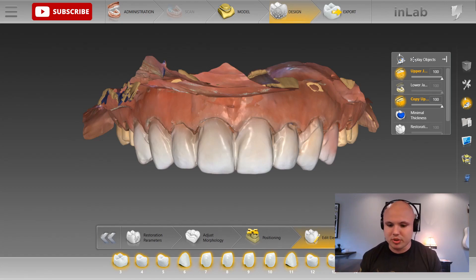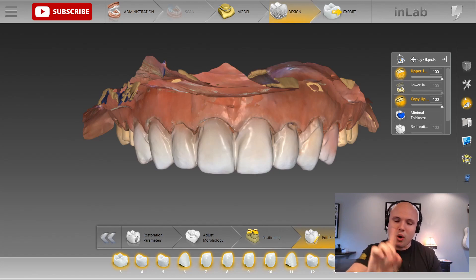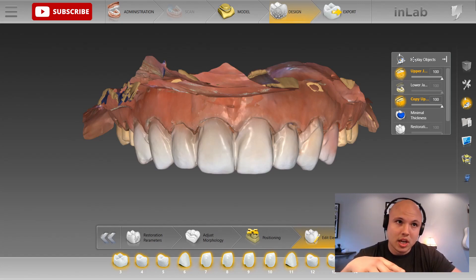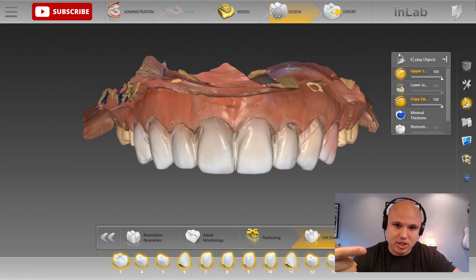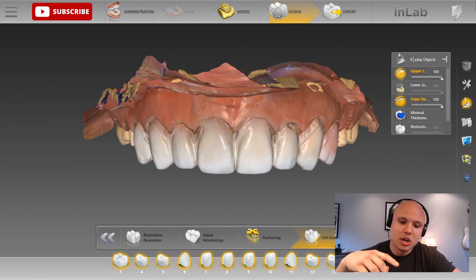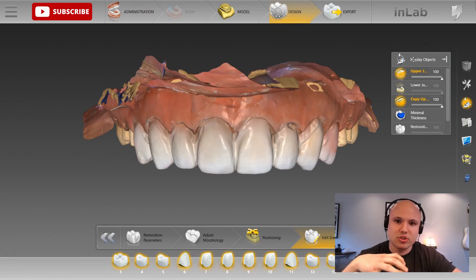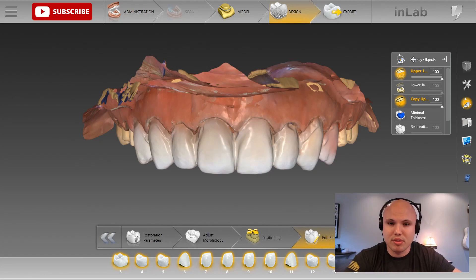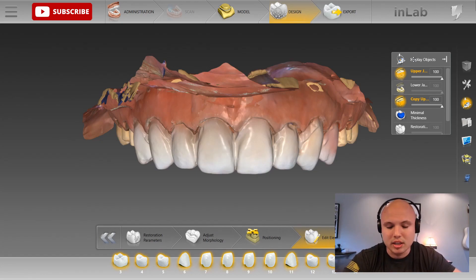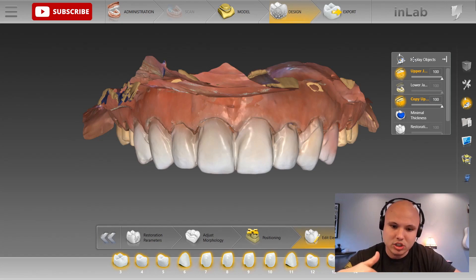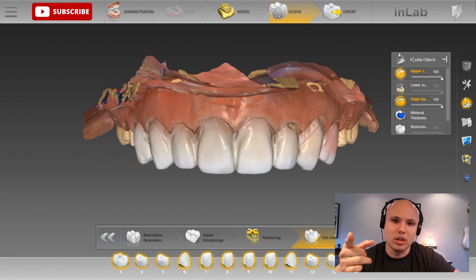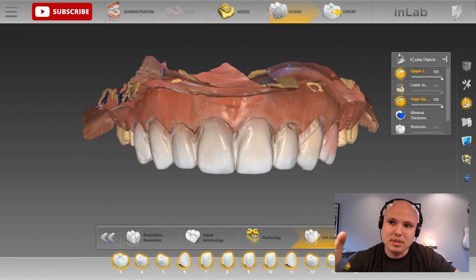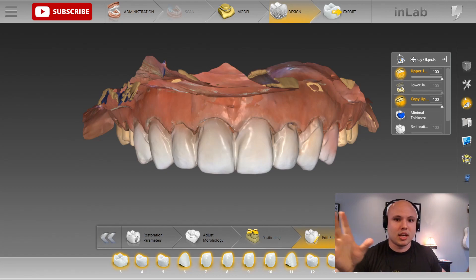Typically, what you would have to do is manually correlate that. What I predict is CEREC in future versions of the software will make that feature more intuitive, and it will be able to use other references like the palate to correlate those two. But for the time being, when you're using CEREC, you would have to typically manually correlate your biocopy scan with your prep scan if it's full arch.